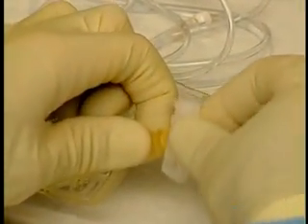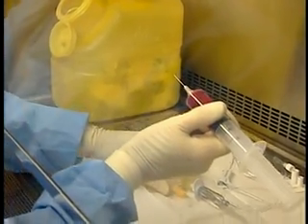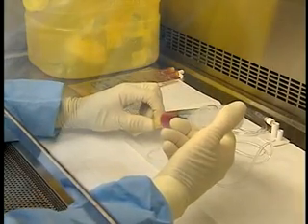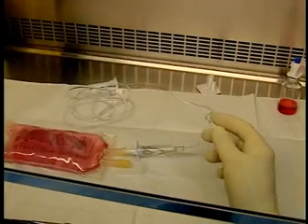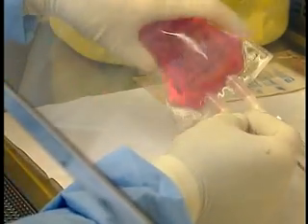To inject the product into the solution, place it on the work surface. Disinfect the injection port. Inject the anti-neoplastic. Wipe the injection port with an alcohol swab. Let the medication circulate gently throughout the solution. Test the integrity of the bag by pressing gently on it.